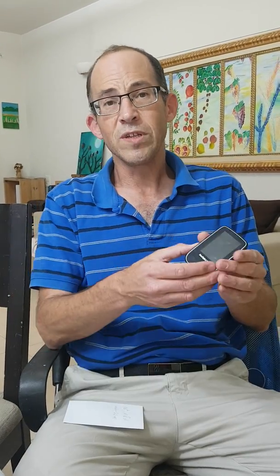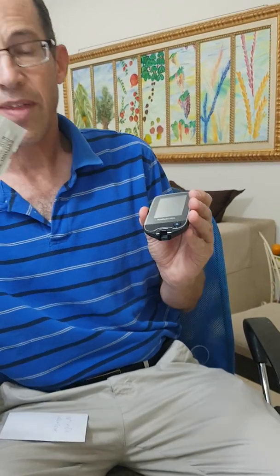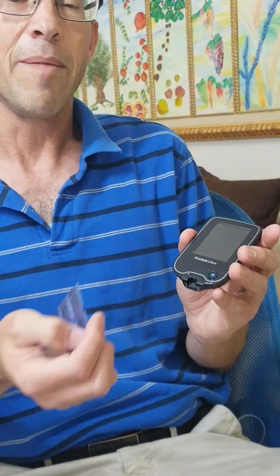In other words, I wouldn't give an injection based on it. On the flip side, unfortunately, I would end up having higher blood glucose levels than I thought. What I want to share is a couple of screenshots. Using this device, I can scan my sensor, and also, if I put a strip inside, I could compare the blood reading from the sensor versus from the finger.